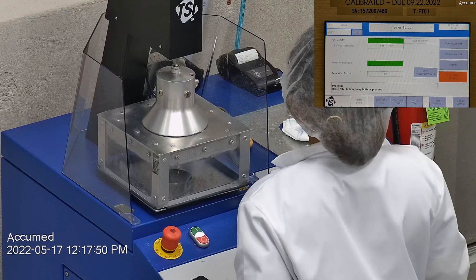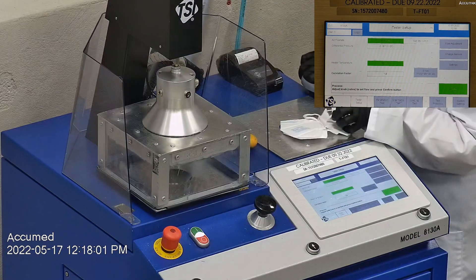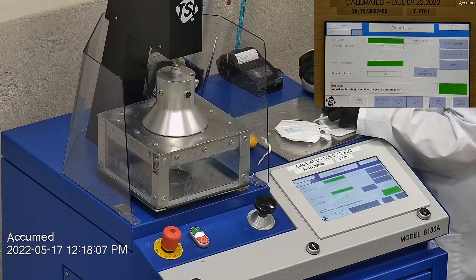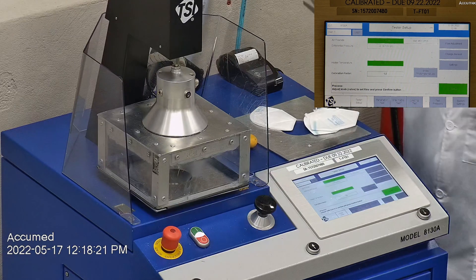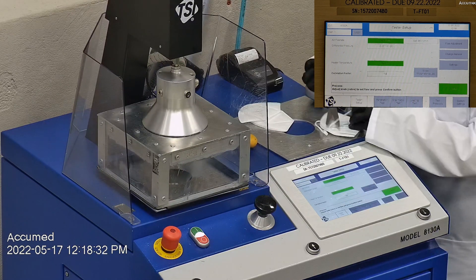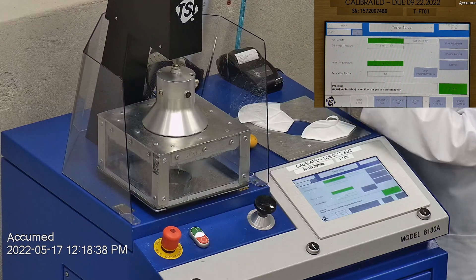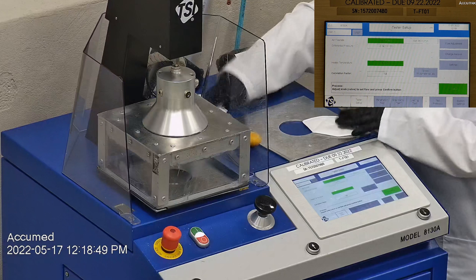With that being said, let's go ahead and see how they test on our TSI machine. We are going to be testing both the filtration efficiency and the breathability. Here is our TSI machine model 8130A — this is the same filtration testing machine that NIOSH uses to approve N95 respirators. Our procedure is also inspired by NIOSH. We first run the tester setup and start removing the headband from the mask before placing it onto a testing plate. Then we make sure that the mask is properly and completely sealed with hot glue to the testing plate.